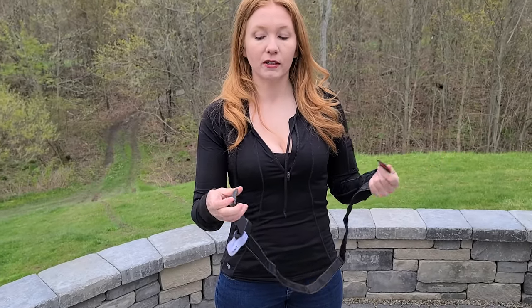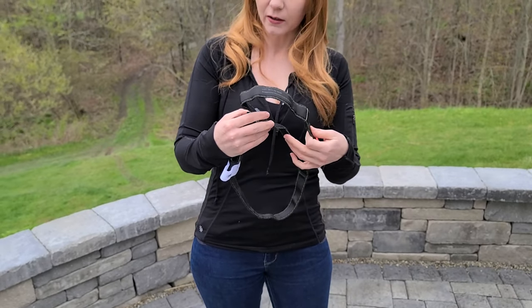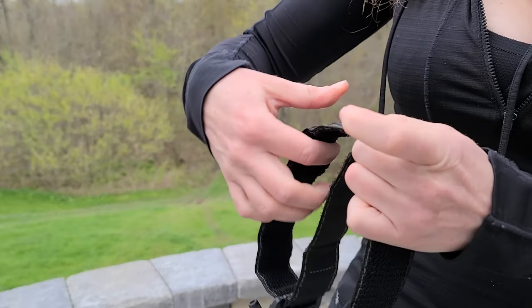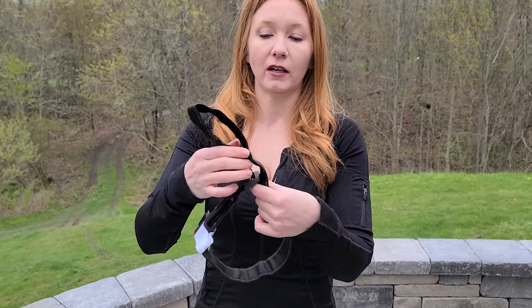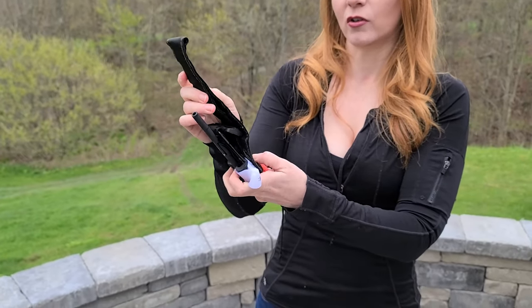The next thing we're going to do is run it through this hoop here. We want to set it for our biggest limb for ourselves, because hopefully we'll have two hands when using it for someone else — but if you need to use it on yourself, you want it easy to use. The most important part is that we have it offset so it's easy to grab, with some of it hanging off there. Now we have two loops here, so we're going to slide this buckle down to the bottom and then attach that velcro, and then fold these pieces over to make it more flat.